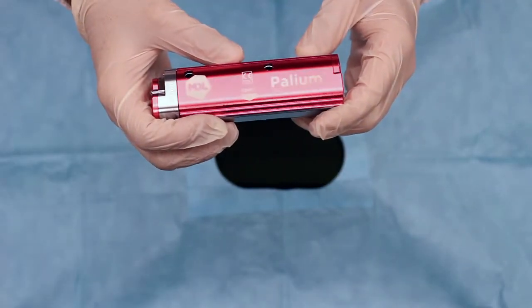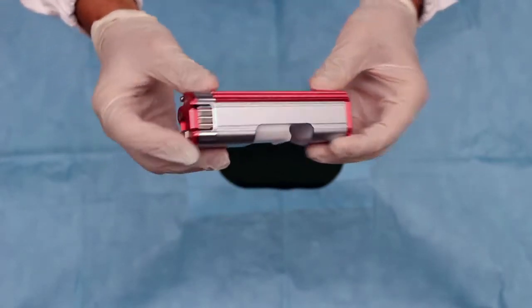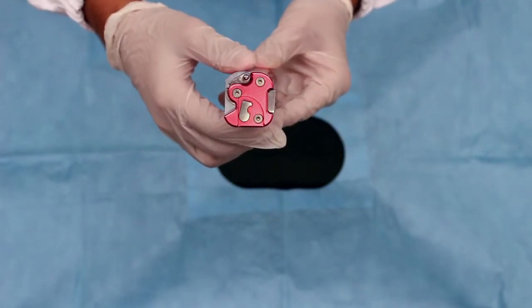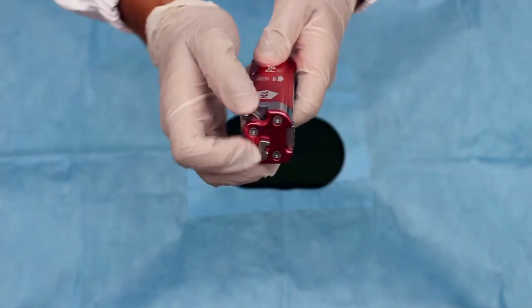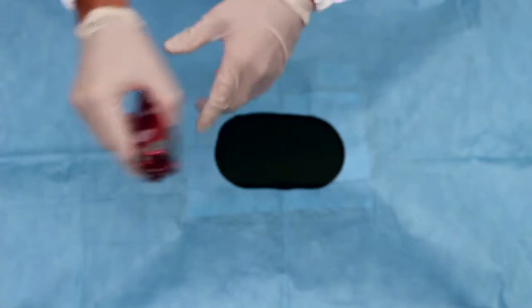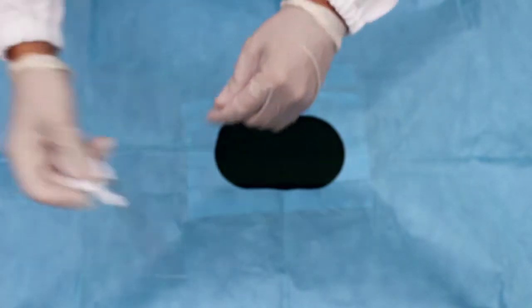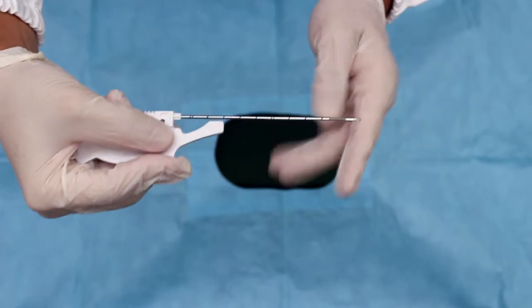Palium gun is composed of a loading handle, a safety lever, a trigger, and a sample length selector. Palium needles have centimeter-marked cannulas and echogenic atraumatic sharpened tips.